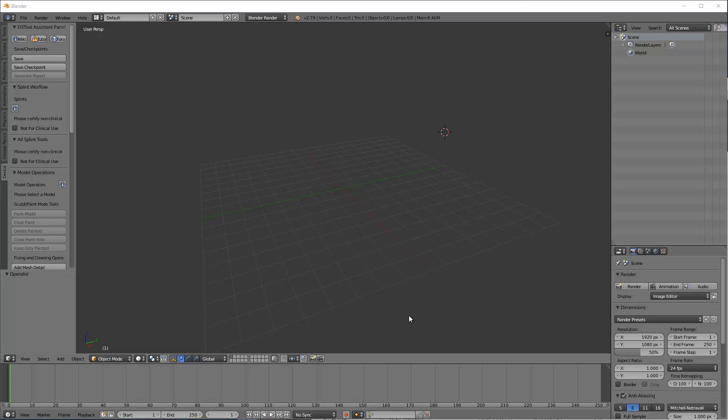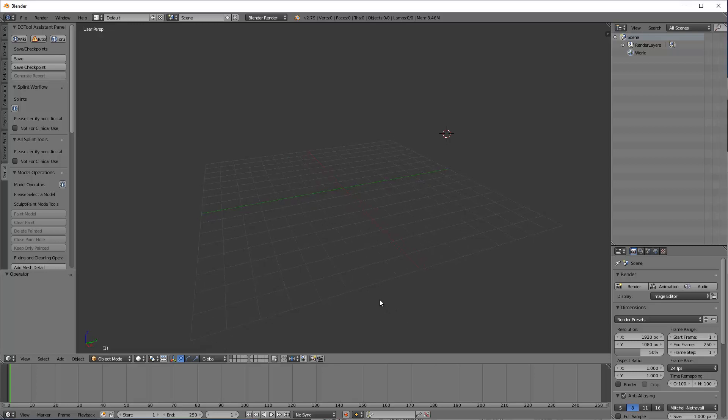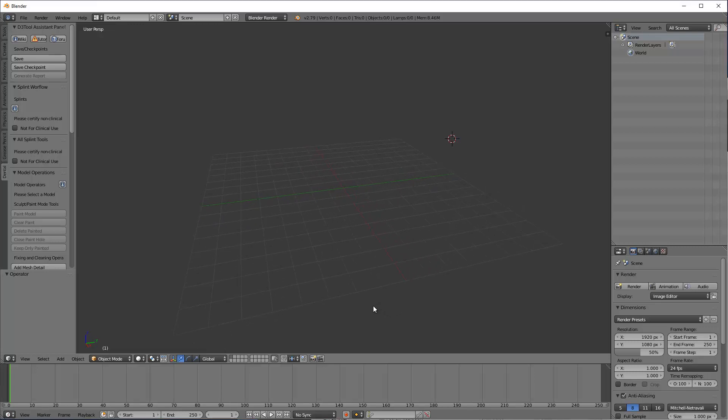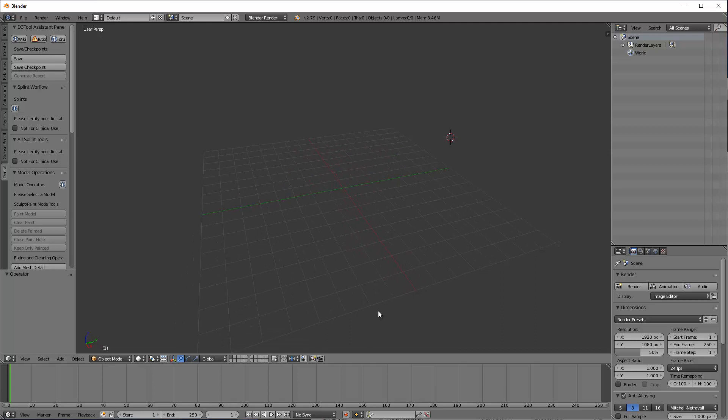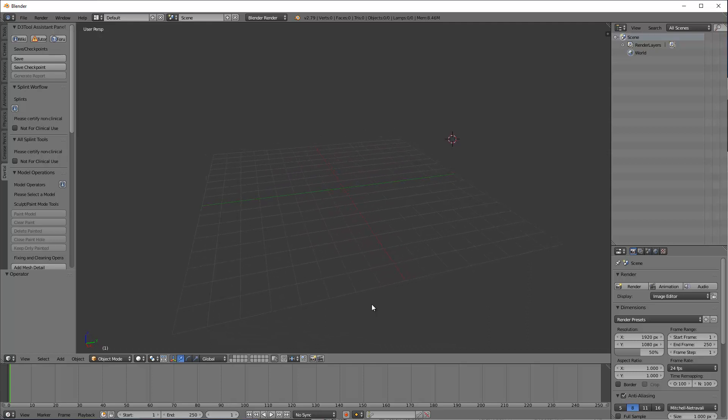Okay, so in this video I'm just doing a quick update on the D3 splint software, and it is the software I use to create my occlusal guards. Most of the occlusal guards in my office that I do in-office are anterior deprogrammers. I'm not going to spend a lot of time being really elaborate on this case. I'm just going to kind of walk you through what I do and hopefully it's helpful.